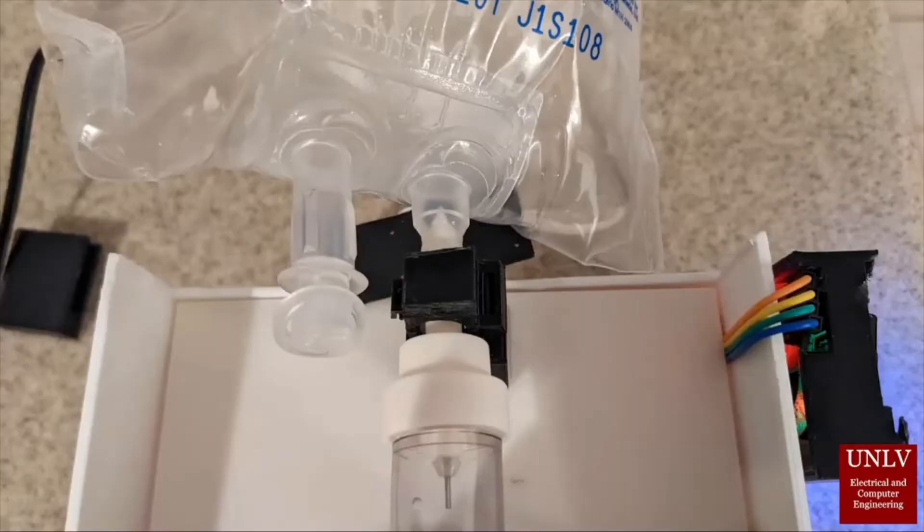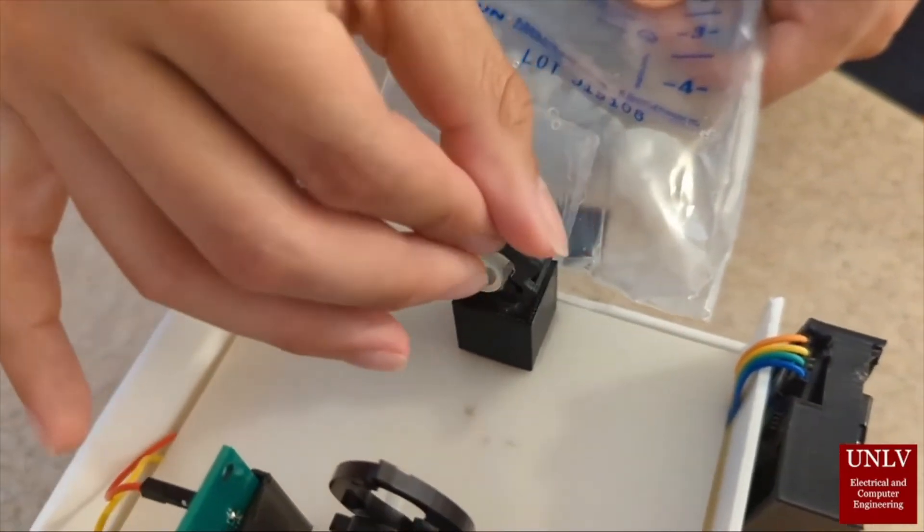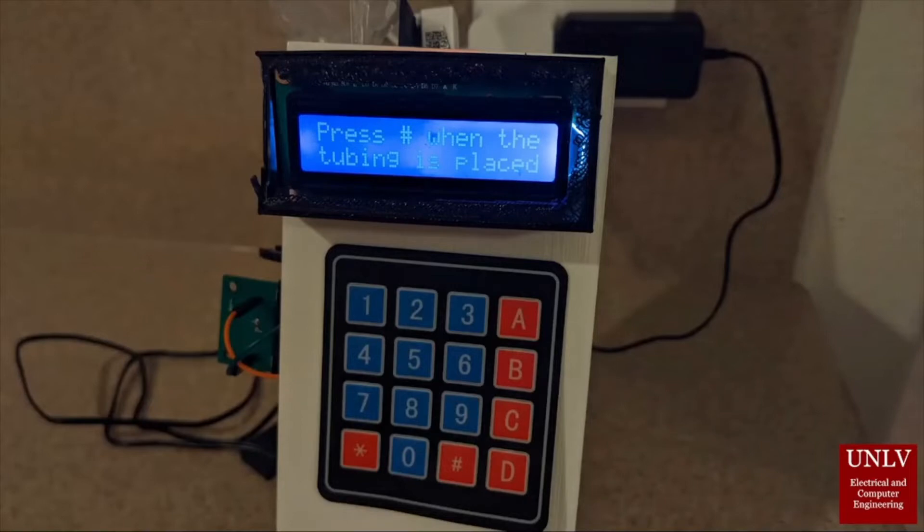The IR sensor gets the drip rate, along with the gripper. The port stabilizer holds the port of the bag stopped and flush so that we are able to spike the bag. We can see it being put on here — it should just snap in place and be around the same height as the spiker.